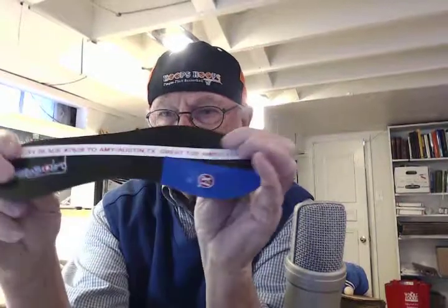So we made her an X1 Blade that's got a little extra pop at the end of her gait cycle. It's rigid just under the great toe, but not so rigid that it doesn't give her an extra pop. Totally flexible in the midfoot, so as not to restrict any ankle motion.